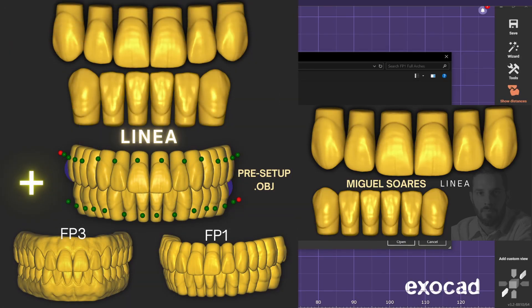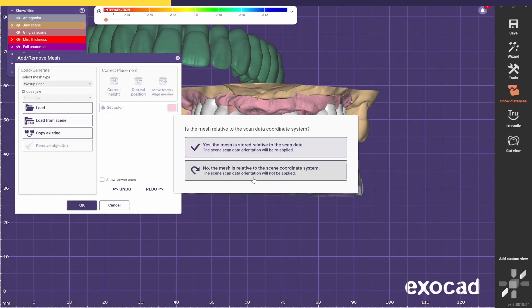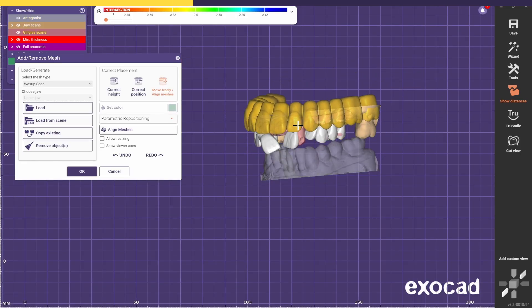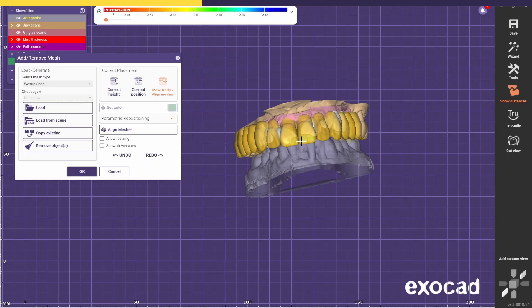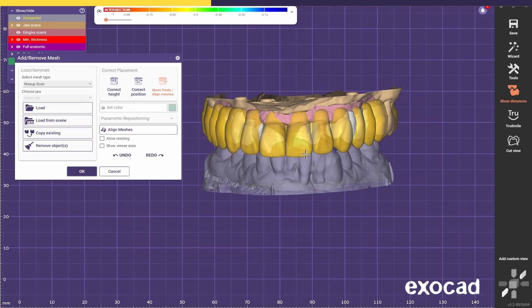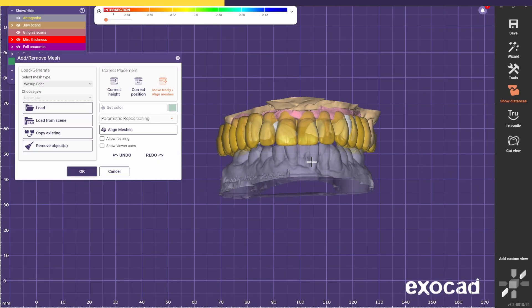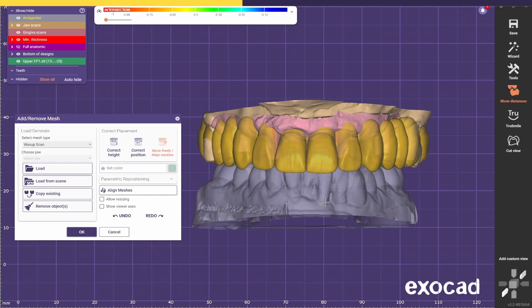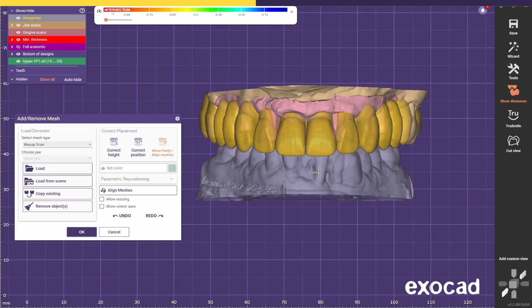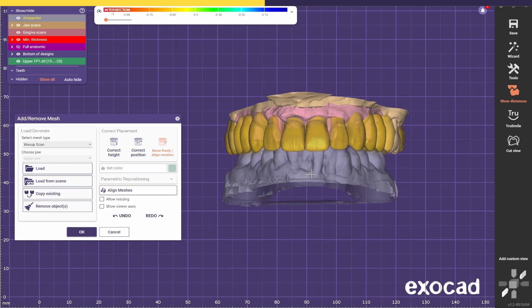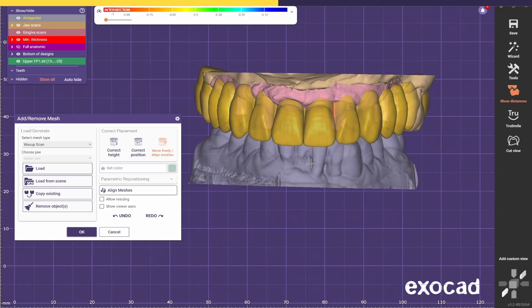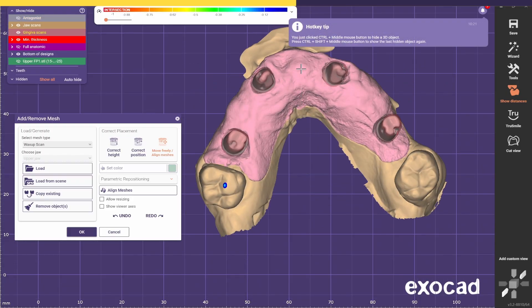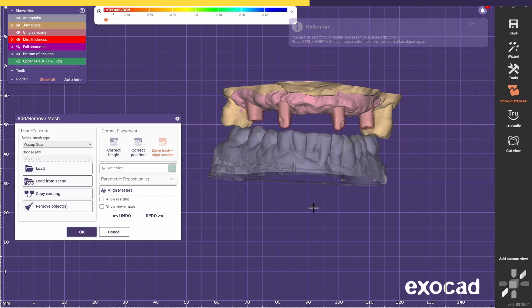I'm going to choose an upper full arch FP1 that I designed previously. You can get this if you get my new library, Linea — you'll get all these extra files with the library. Now we select Open. It doesn't really matter what you choose here. At this stage we place the Waxup more or less in the correct position. I always like to guide myself first to place the centrals, as they're going to define the rest of the bridge.